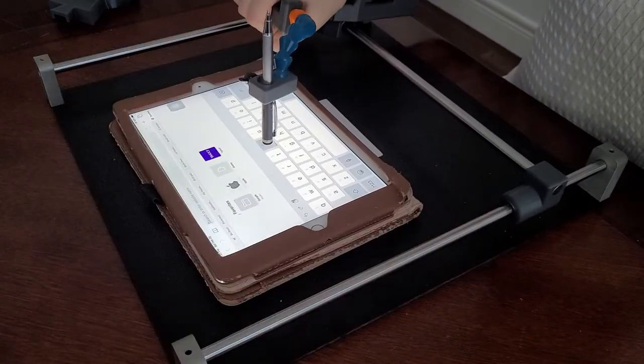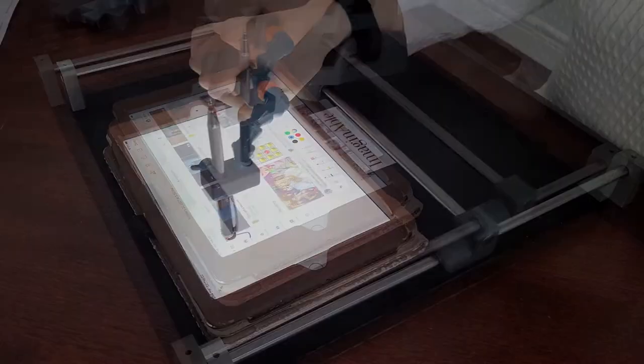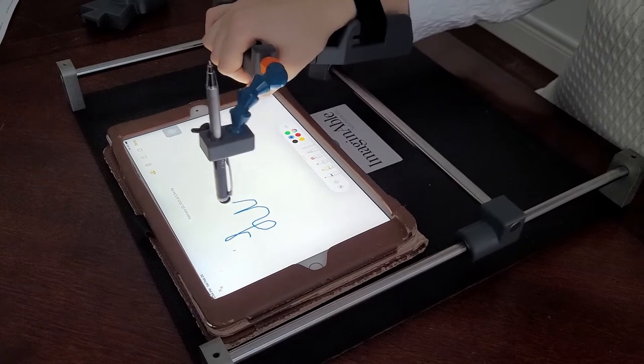Not only can you enjoy playing games, you can also type using the stylus, browse the internet, draw on notepad, and navigate through your device with ease.